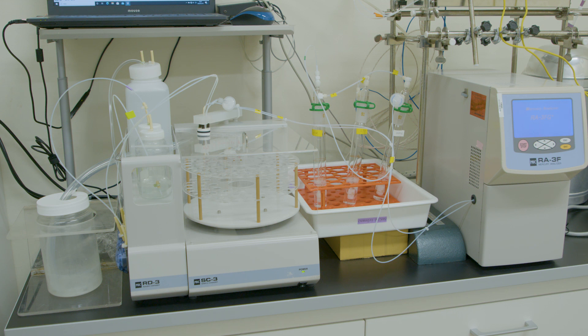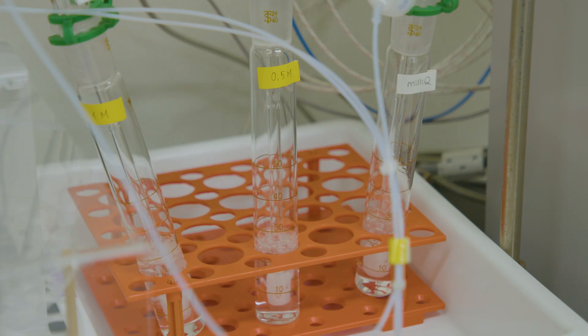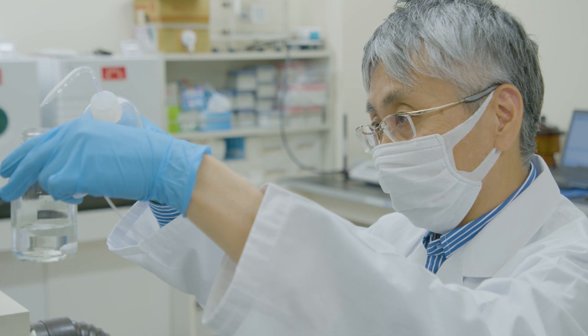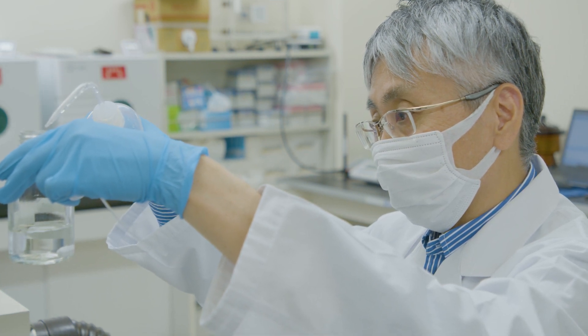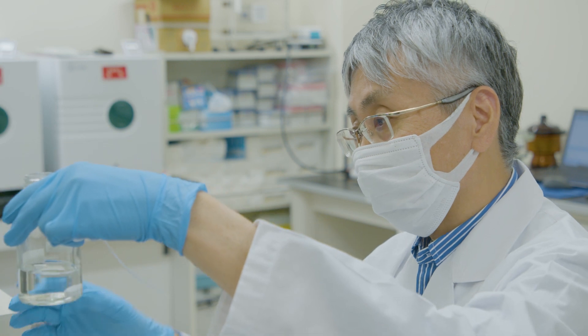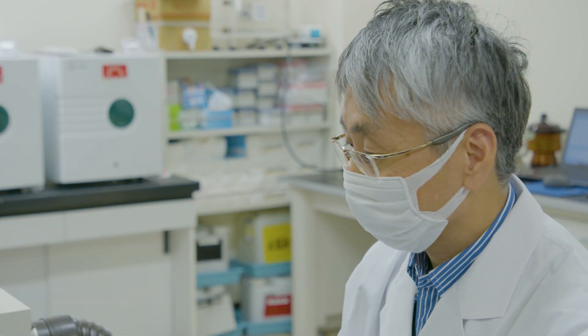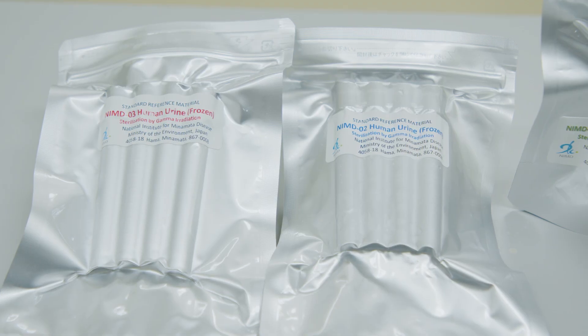Let us talk about the concentrations of mercury in urine. In general, people with low exposure have levels of about 0.3 micrograms per liter. However, people with high levels of exposure, from dental fillings or through eating fish, for example, can have up to 5 nanograms per milliliter. In gold mining areas, levels are often higher than 25 nanograms per milliliter. CVAFS can measure the range of levels that are commonly seen in both the general population and in cases of occupational exposure.